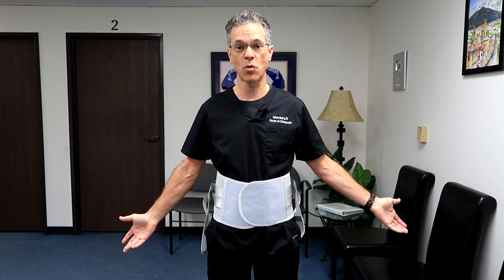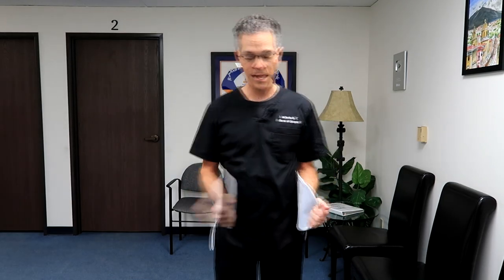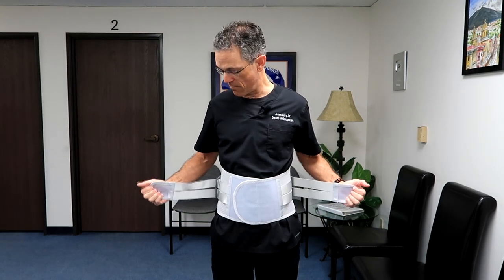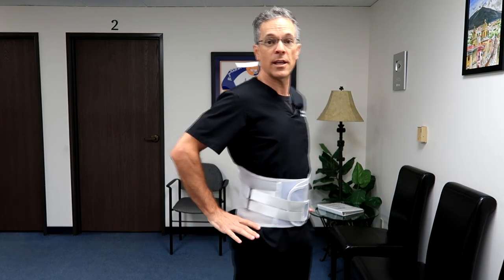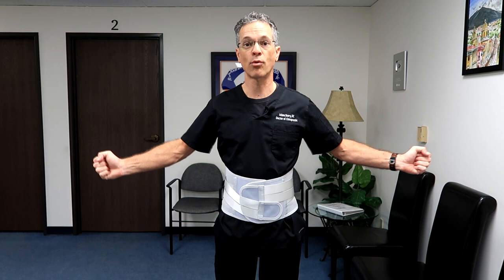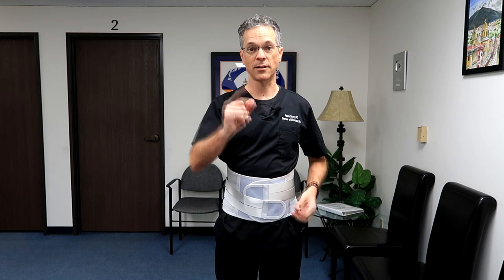The second mistake is people just go ahead and secure it right away — that's not what you want to do. First make sure the side pieces are loose, then take the brace out and stretch it, then secure it — it's going to be tighter. Then to properly secure it even more, take the secondary straps, stretch them out again, and apply them. So: two to three inches below where your hands would be if you're mad at someone, pull the brace out and wrap it, then pull the secondary straps out and wrap them. That's going to give you a lot of benefit for your back pain.